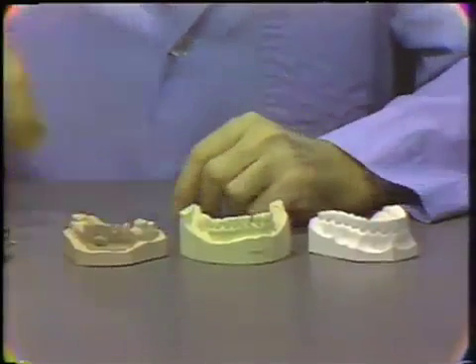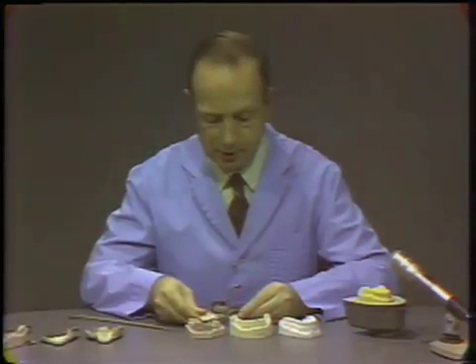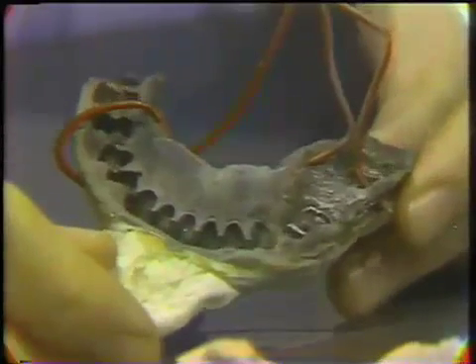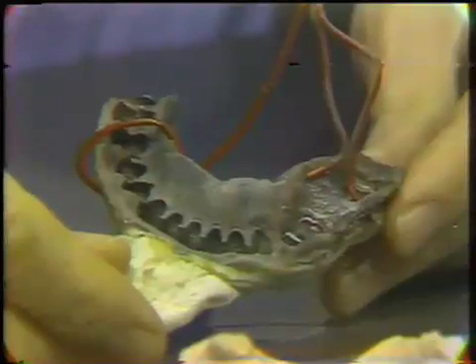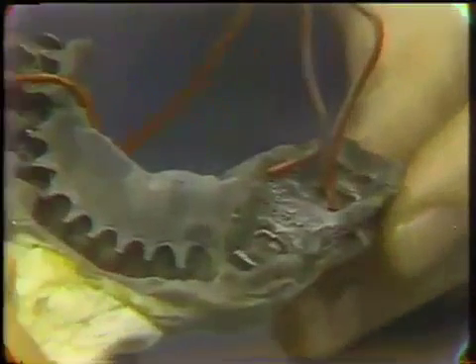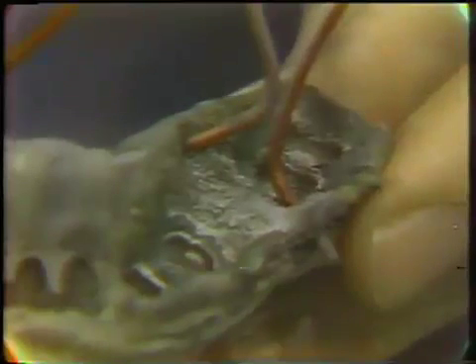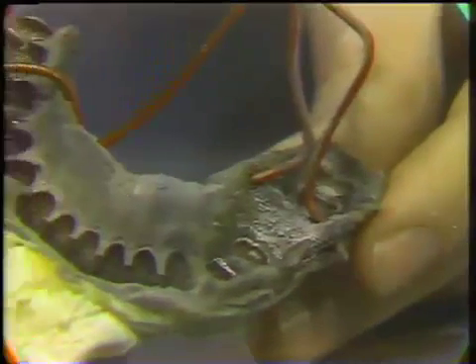Now let's take a look at making some metal models. One of the most common methods is to electroplate an impression. We have taken a rubber impression of the arch and wired it up, and we've made the surface electro-conductive by painting it with a silver powder. Then we place these wires in contact and place this in an electroplating bath. We have plated silver in this instance, plated from a cyanide bath in a basic solution — essentially hooking this up to a battery and simply allowing the silver to plate on the surface of the impression.